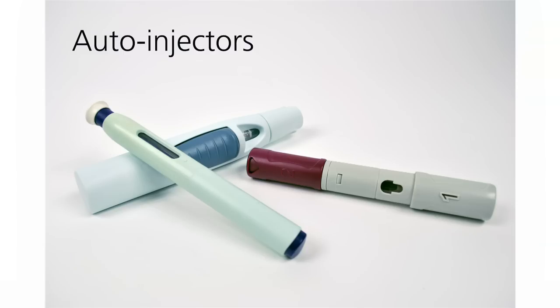Today, we'll be demonstrating using an auto-injector. This is a device that is pre-filled with medicine and will inject the medicine automatically with the push of a button. Many injectable medications come in auto-injectors. Each auto-injector might look a little different, but they're all basically the same.